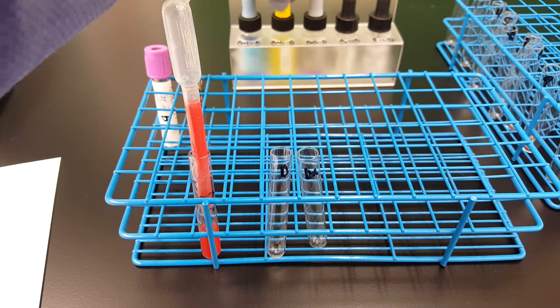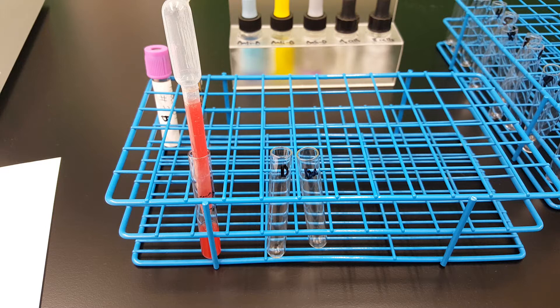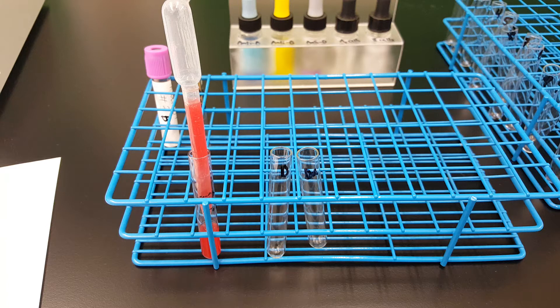What you want to think about before you ever do this is: this is basically done on donor units before they are sent to a facility, or if there's a transfusion center in that facility, then they will do it there to make sure that what they say is on the label of the unit is actually the truth.